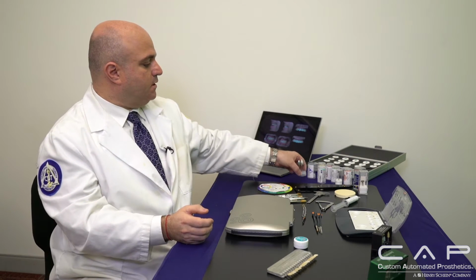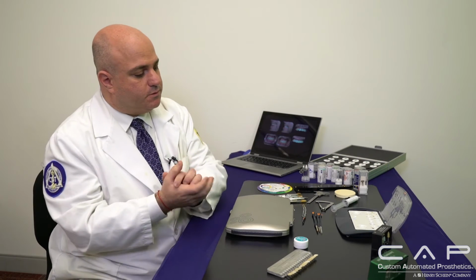So here I use in the green state from Wagner Rotary. They have a nice kit that really does a nice job being able to delicately contour slightly in the green state prior to sintering. Once I sinter it, then I'm able to bring it out and start putting in the final touches again. If you're doing a slight layering, again, as I mentioned earlier, I layer only about 0.3 millimeters just to attain that translucency and that vitality.